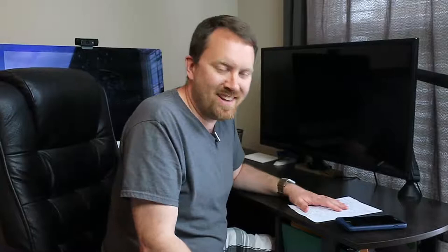So today we're going to call into Aira, we're going to get an agent, we're going to tell them we're doing a demo so that they're not freaking out when I release this later on the web. But that way you can see what it's like in real time, and then if you have questions you can let me know down below as well. So let me show you how this works.